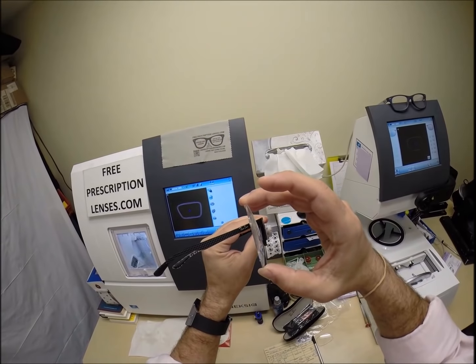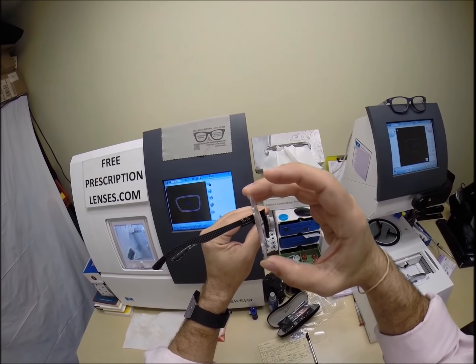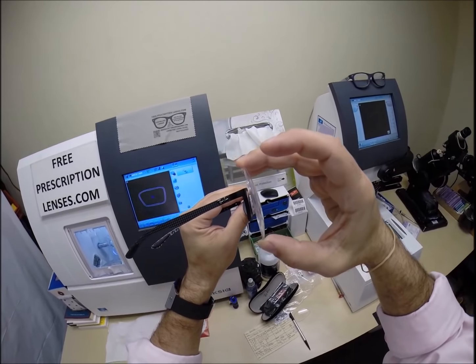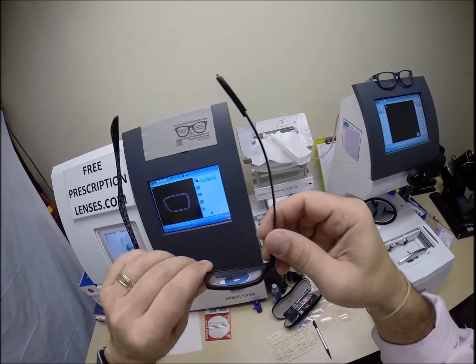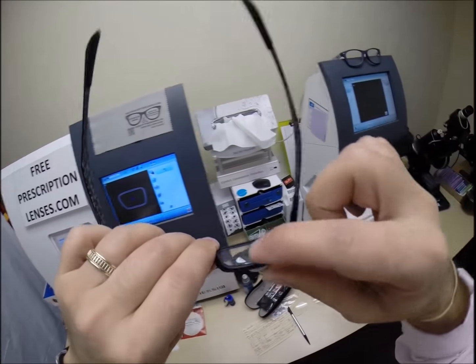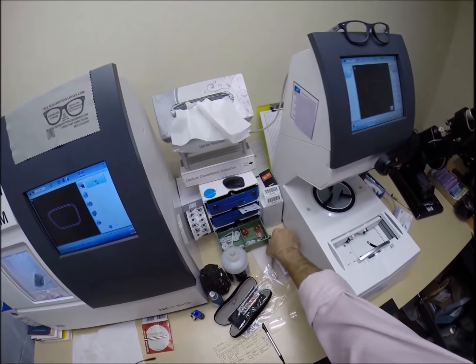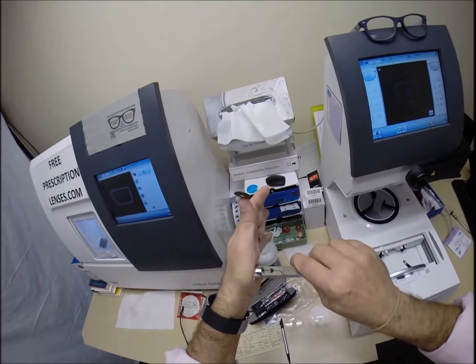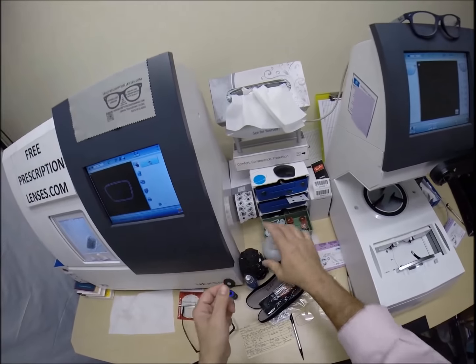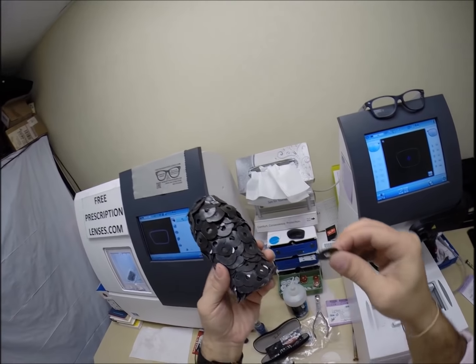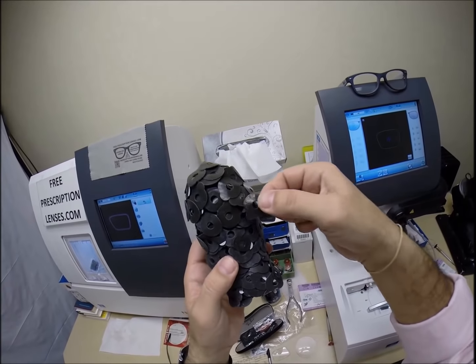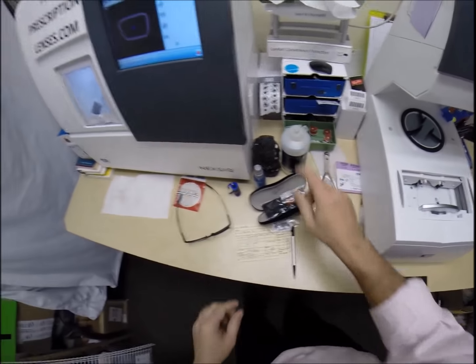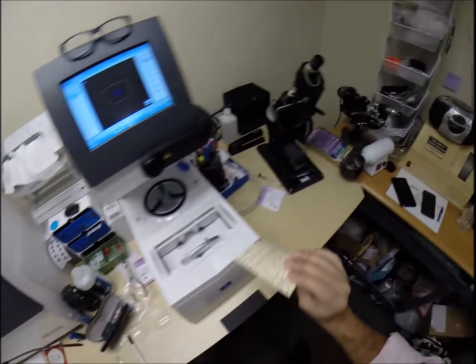I could move the bevel forwards or backwards. Actually, if I moved it forwards, the bevel, the lens would go backwards. If I move the bevel backwards, the lens would move forward into the frame. But you have no edge thickness. If my flashlight would cooperate, you would see that. Let me go ahead and take this block off. Pull the sticker off. Dry the block off with my hand-approved drying technique. And we're going to add to my monster. Wherever it comes separated, I press them back down. The artwork continues. It's almost as big as my bottle of cleaner.